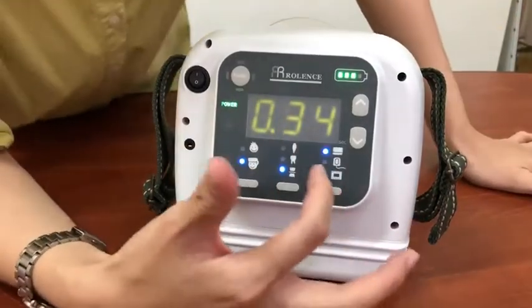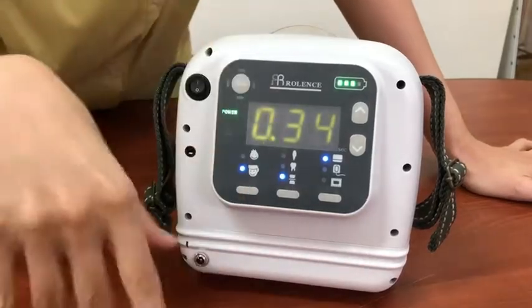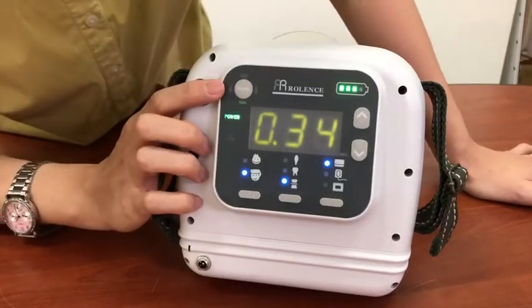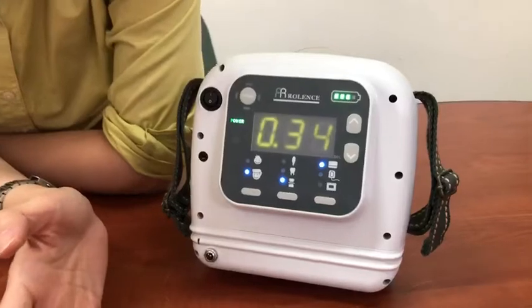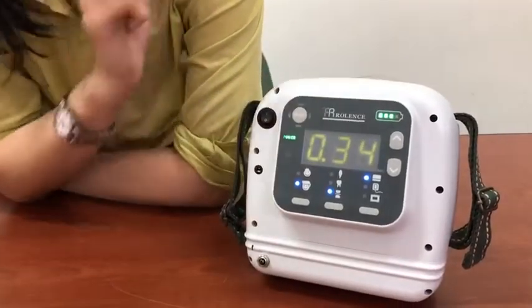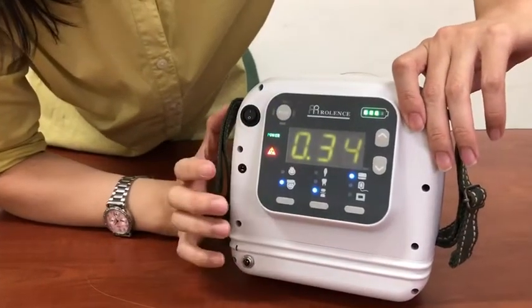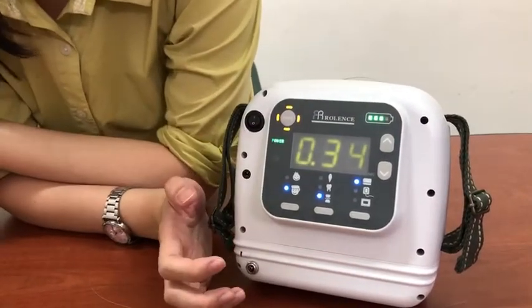The timing is not fixed, so you can adjust it to suit your current treatment. And this one is the safety switch. So when you are doing the exposure, you have to press this and do the exposure. Green light — you will hear the beeping sounds during the exposure, which means it is successful.